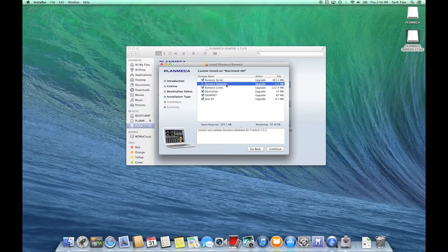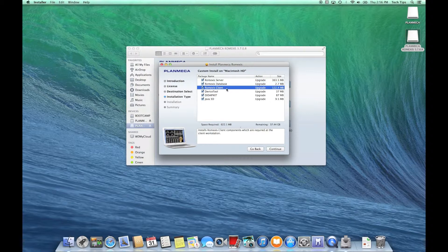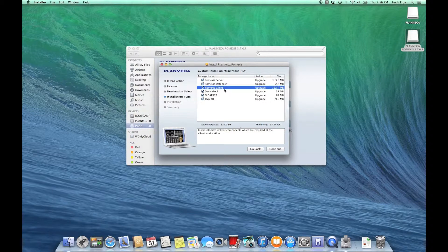Next is Romexis Database — this installs and updates the Romexis database for Firebird 2.5.2. Any time you're installing for a server, you're going to need that Romexis Database box checked. Now, for a server installation, do we need the Romexis Client box checked? The answer is no, but it doesn't hurt — it actually helps because it gives us another troubleshooting option, letting us open the Romexis client window directly on the server. The Romexis client is literally the window that opens when you click the Romexis icon.